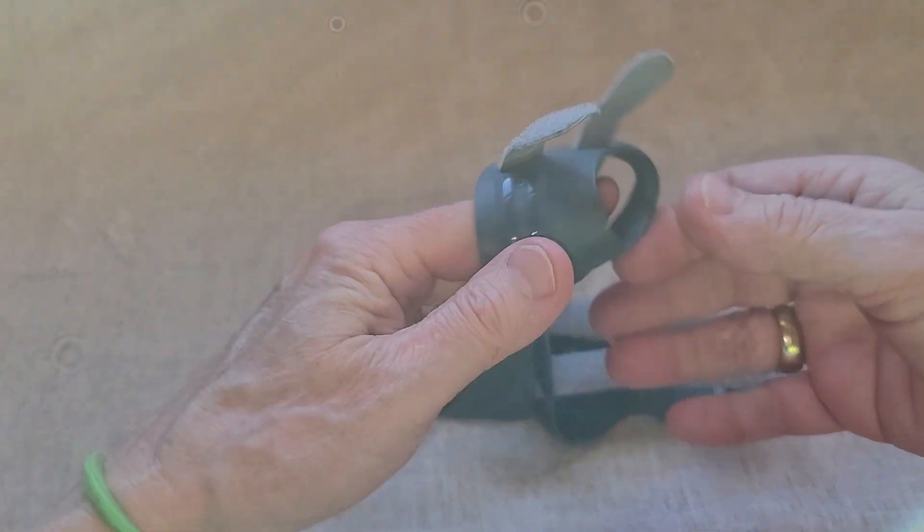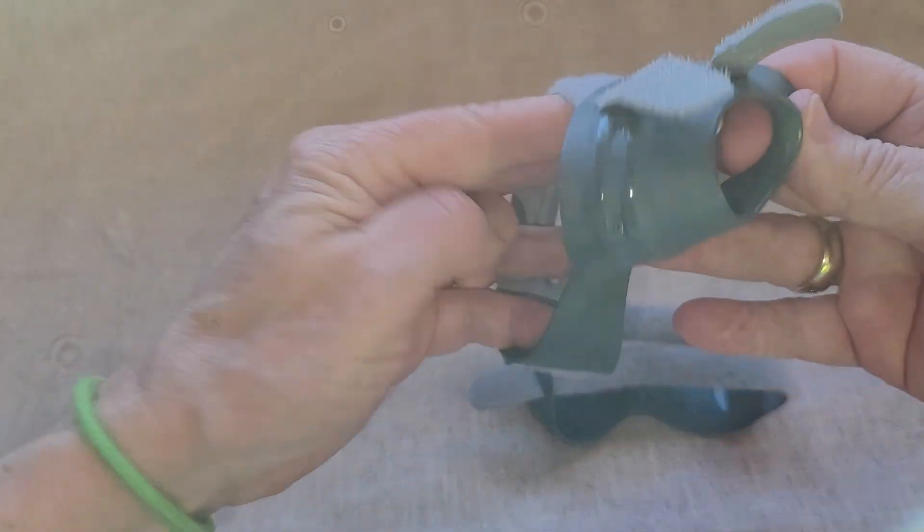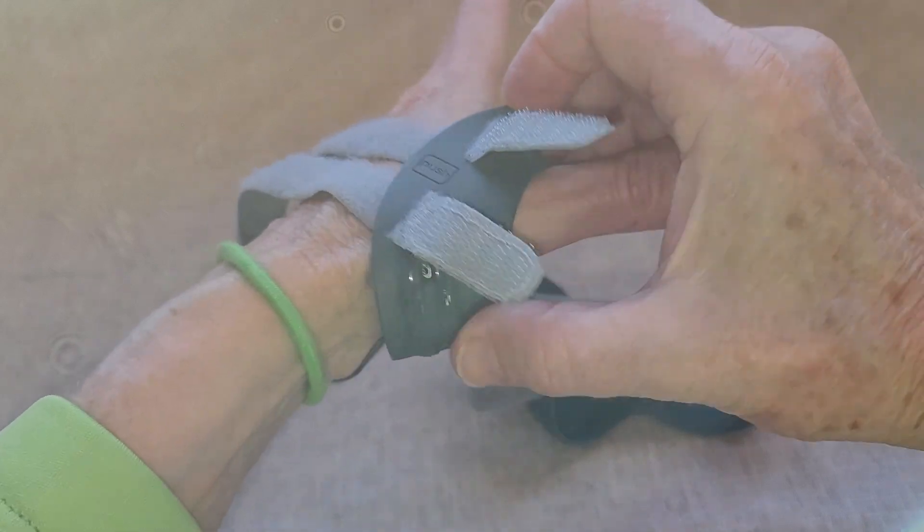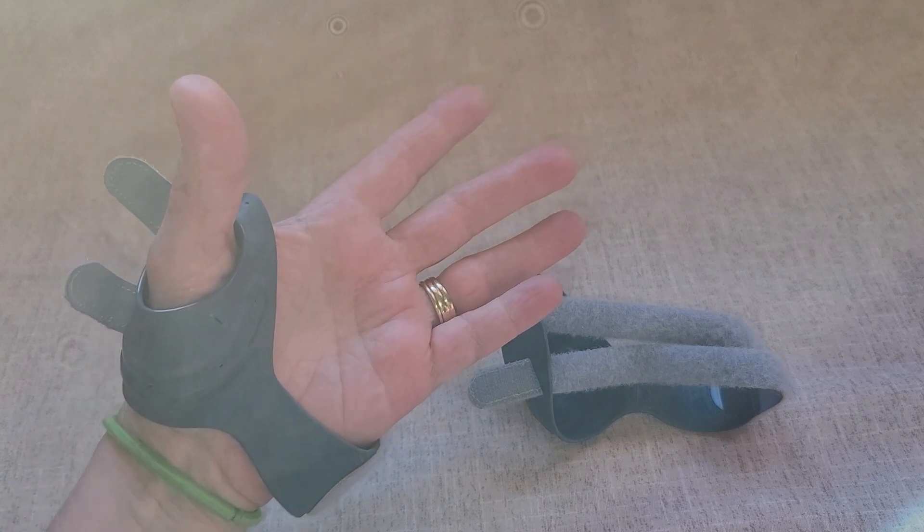I ended up ordering one for each hand. They are very lightweight and adjustable, and they come in different sizes. I found that the measurement guide on the website works quite well.